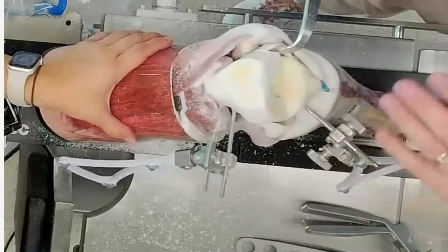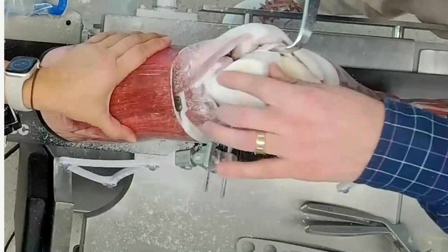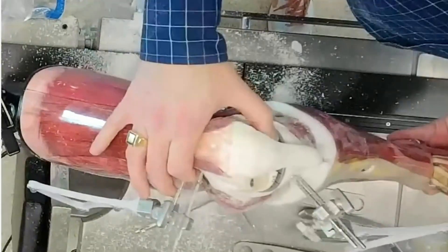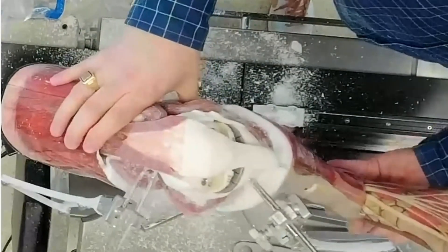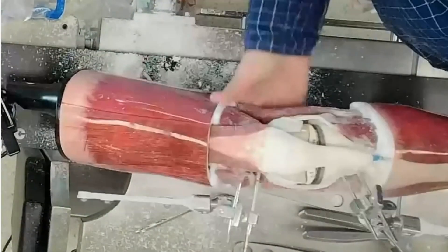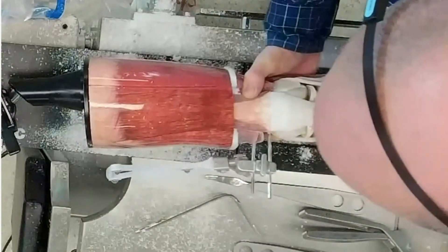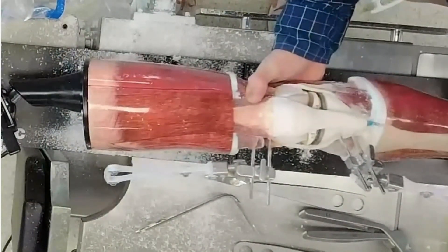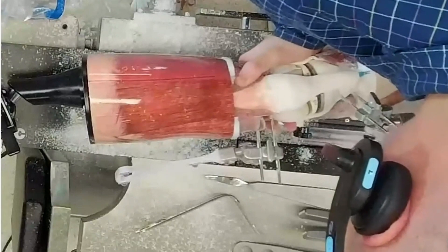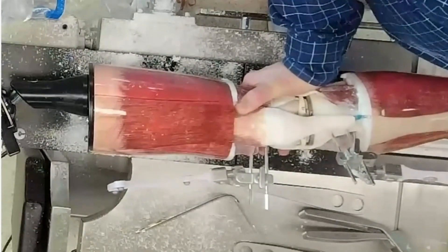The difference in blade speed and penetration — and how quickly I can cut through the bone as it changes from the cortical rim to the cancellous layer and back to the cortical rim — gives really positive feedback on the saw. Looking at the varus and valgus stress at the knee, what's important for our surgeons and for the model is that the gaps I'm seeing clinically very closely represent what I'm seeing on the graph. If I apply that varus stress, I can see probably a three or four millimeter gap opening up on that lateral compartment, which is almost exactly what I'm seeing on my graph. Conversely on the medial side, it's probably a three millimeter gap opening up there, which is again almost exactly what I'm seeing on my graph.